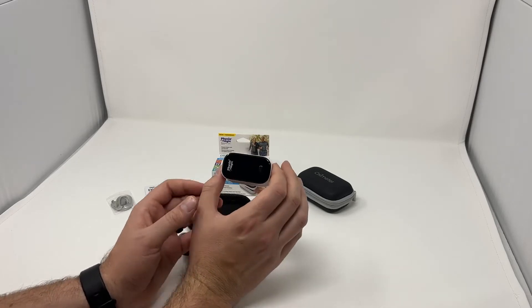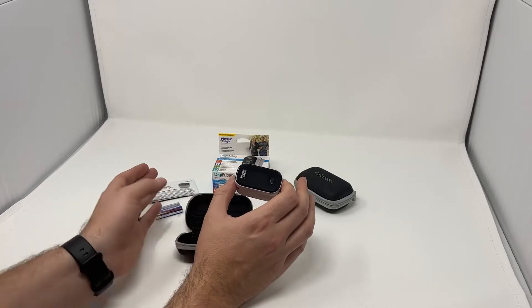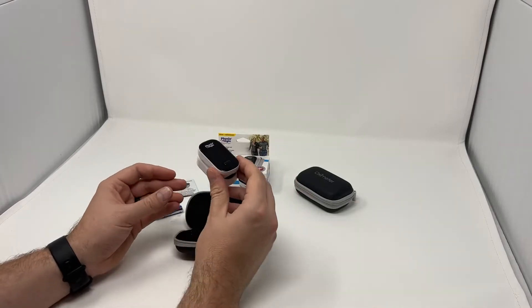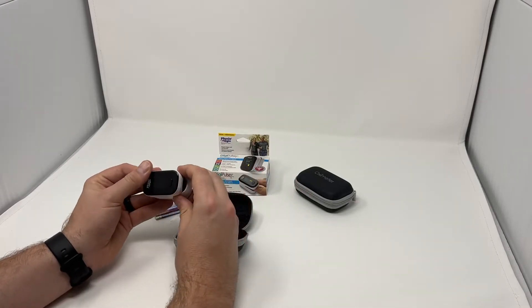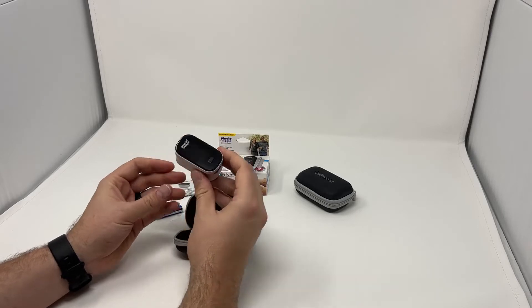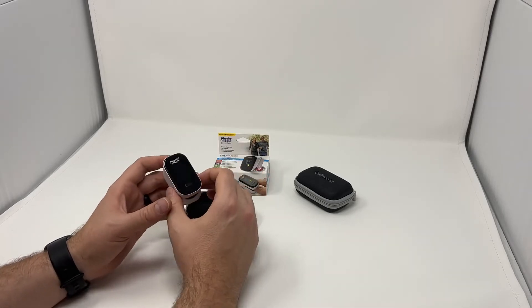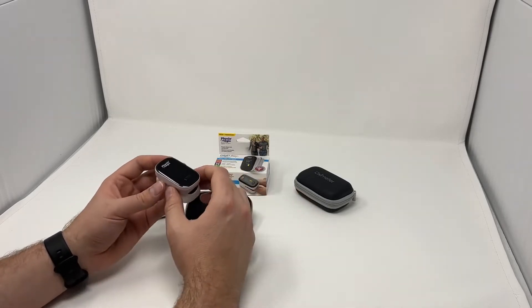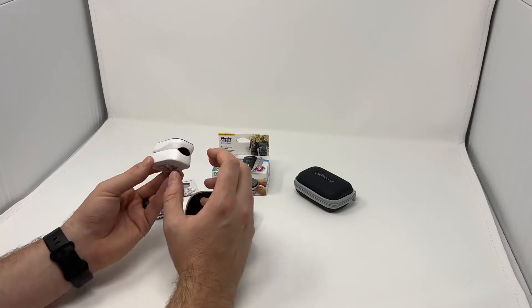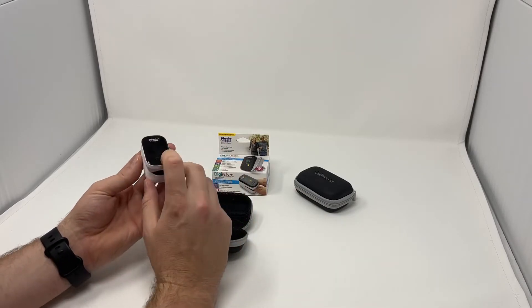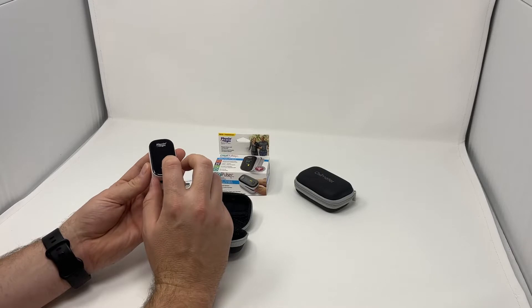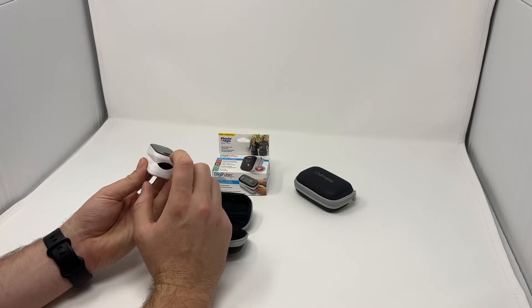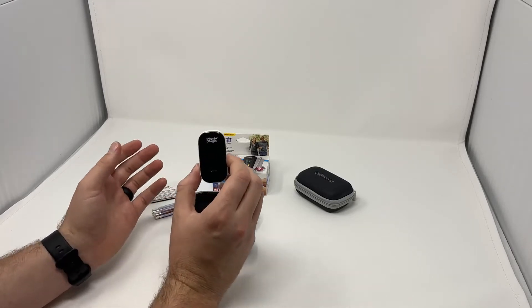These brand new devices we just brought in are by Physiologic. These are Health Canada approved pulse oximeters and they are rated to be accurate. That's a big difference between this and a lot of the cheaper models out there - this is a really good accurate meter. It's got a really fine finish on it, a nice high quality OLED screen, and it just works tremendously well.